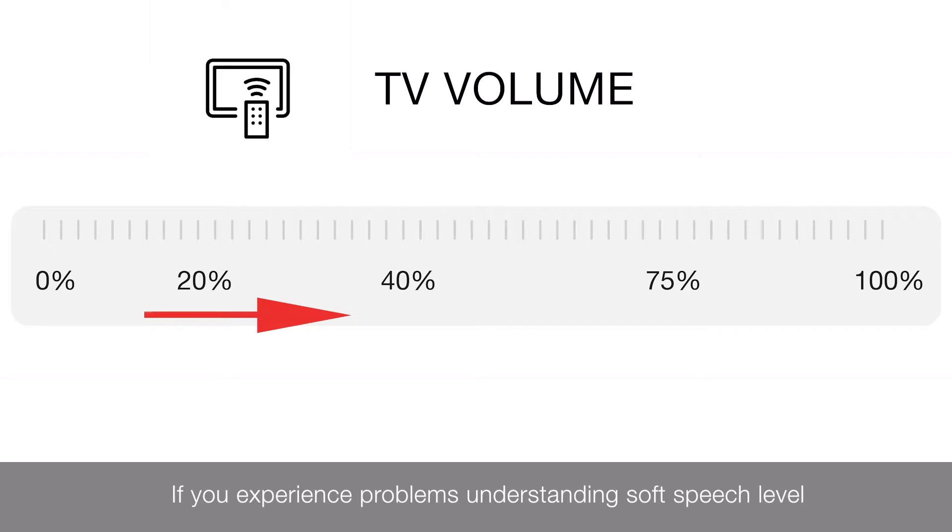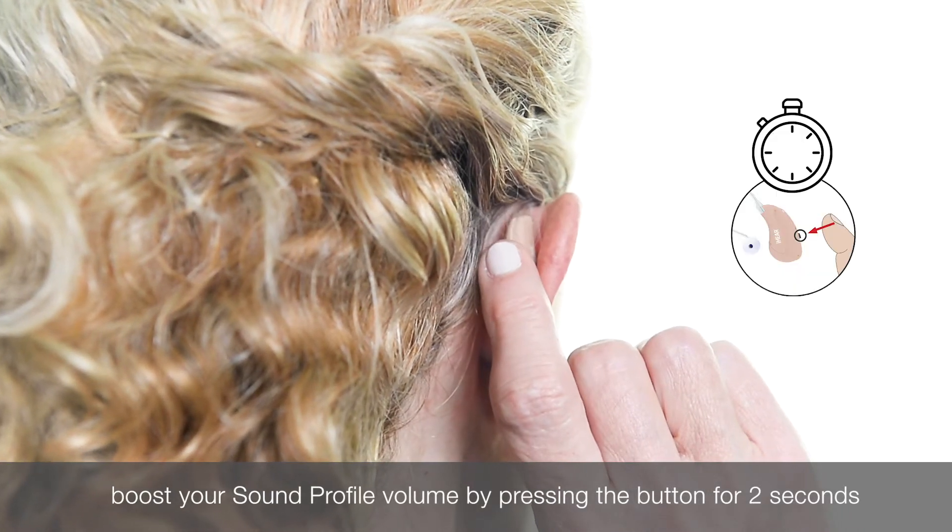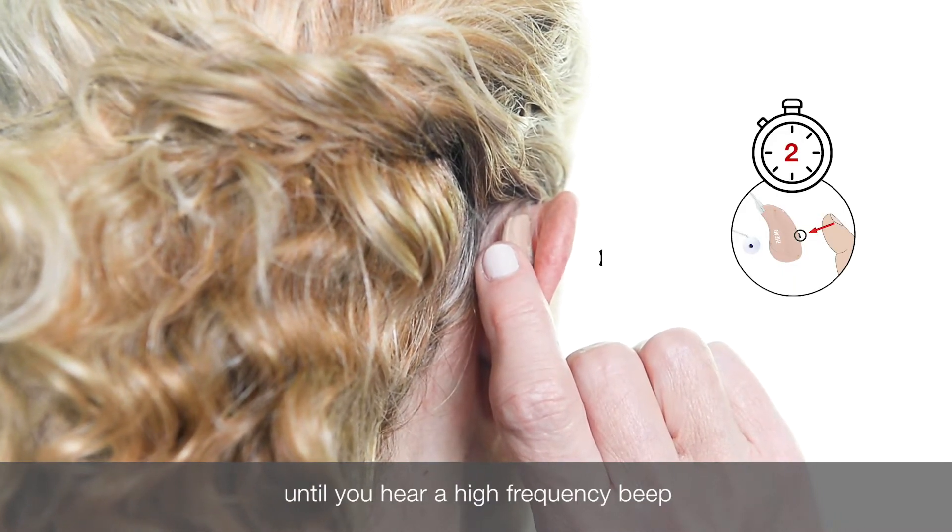If you experience problems understanding soft speech levels, boost your sound profile volume by pressing the button for two seconds until you hear a high frequency beep.